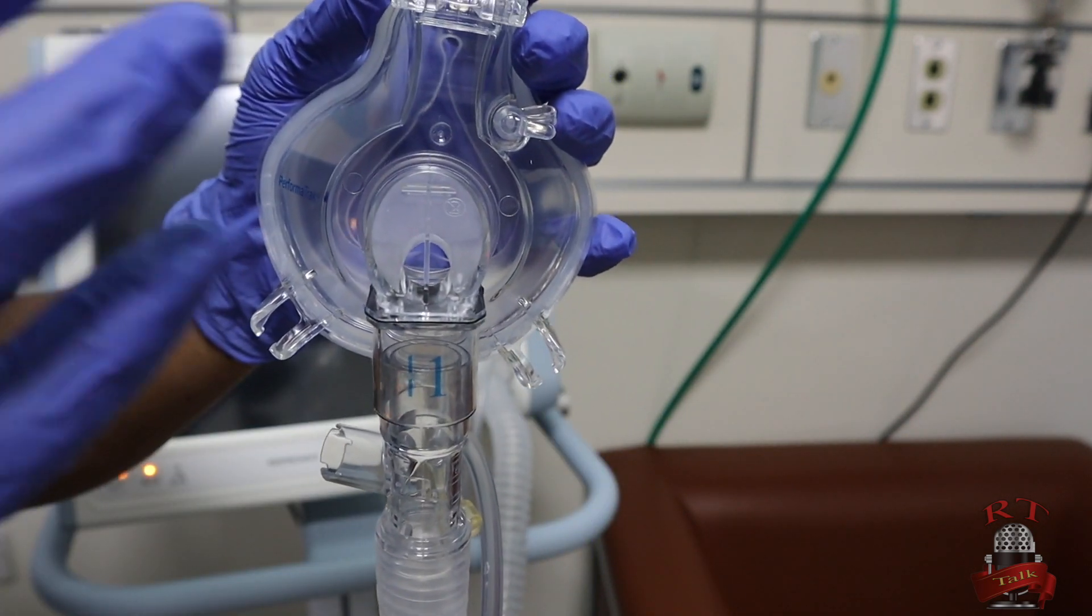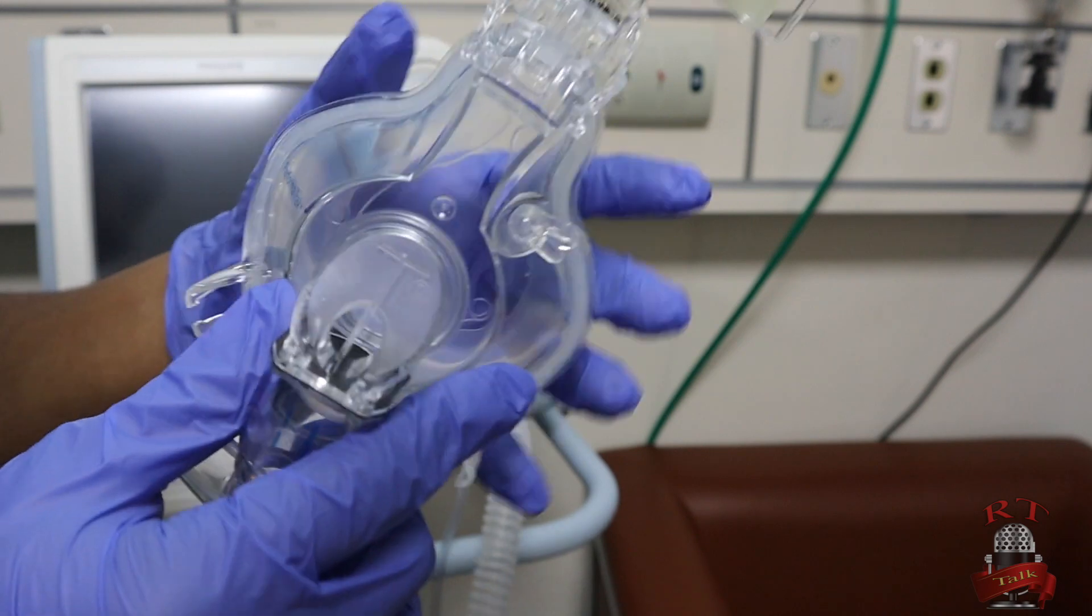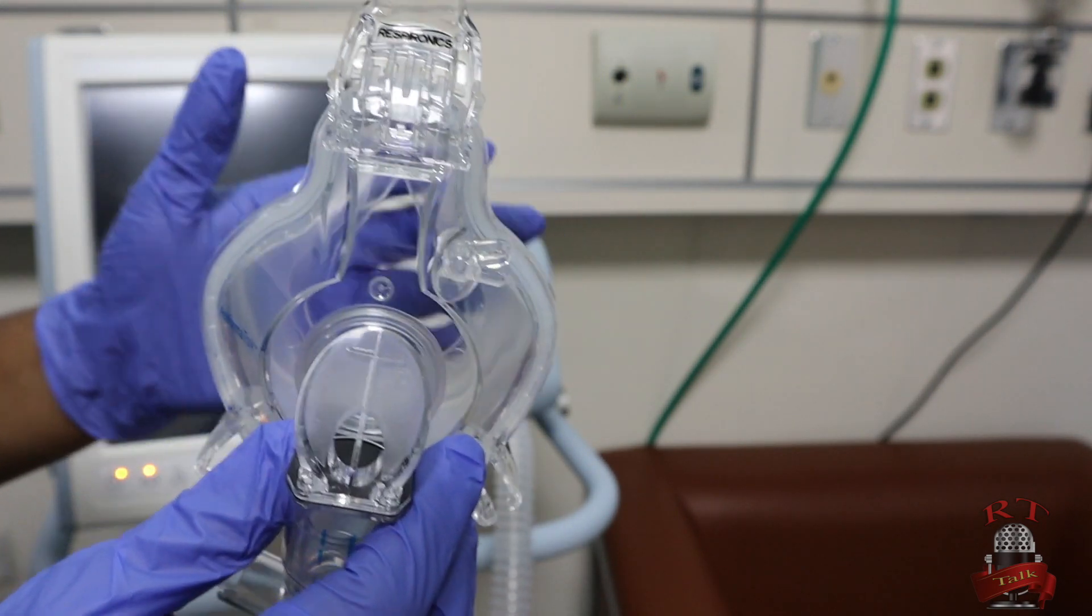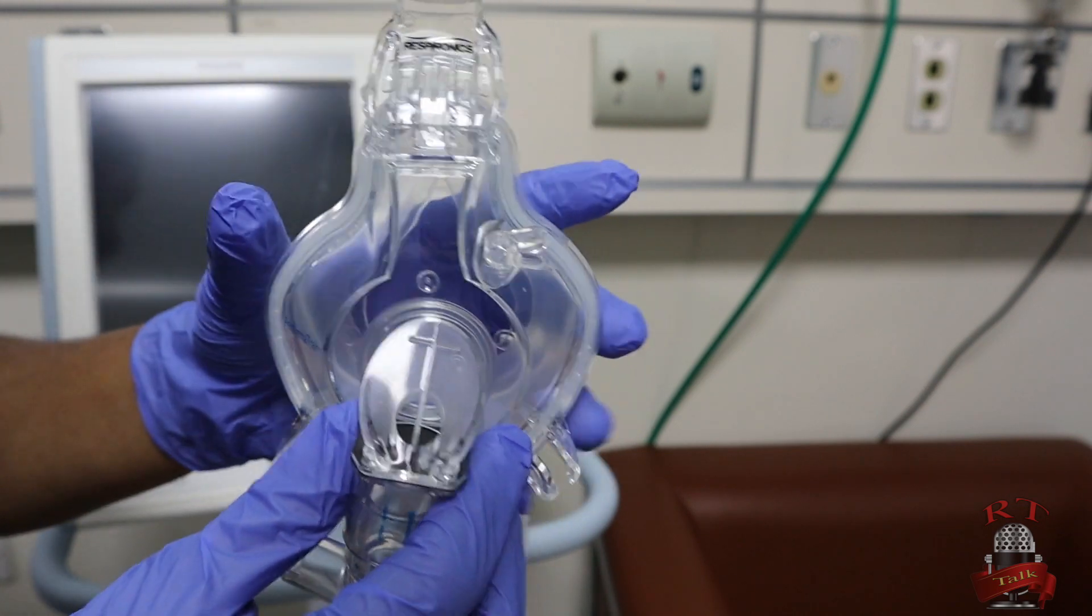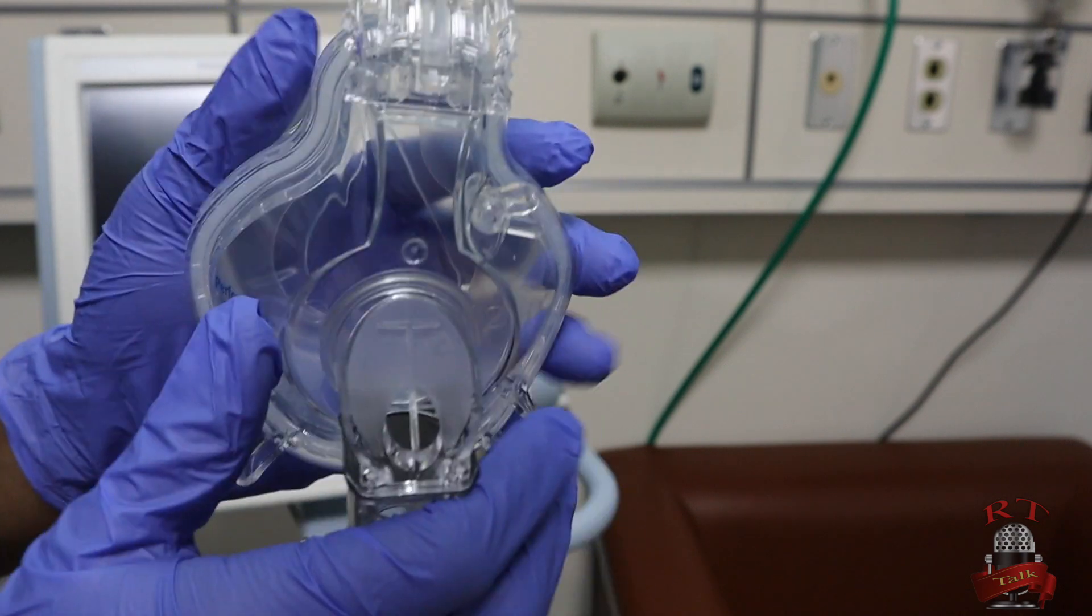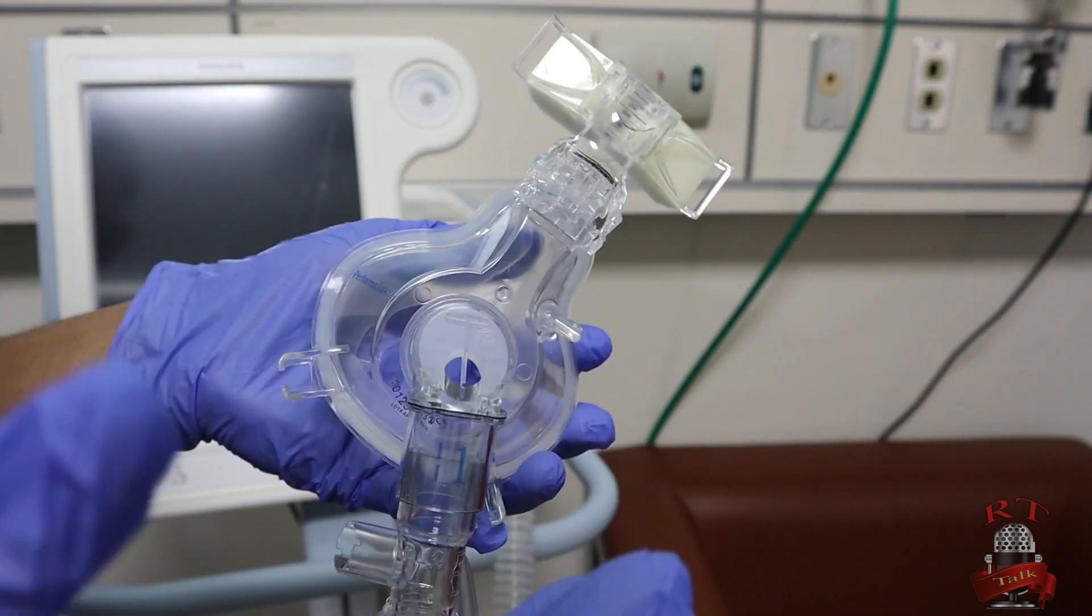Or he can even remove the mask. The reason for this part is that you have to make sure that your mask has a safety valve. So if something happens—the machine shuts down or there is no electricity—your patient will be safe and can breathe even through this opening, or he can remove the interface if he is able to remove it.